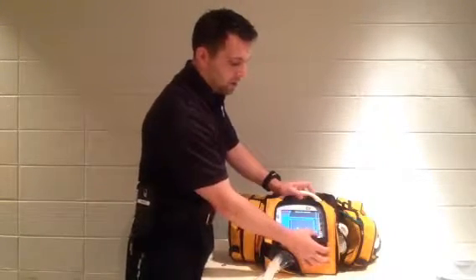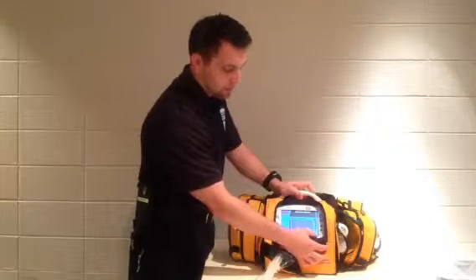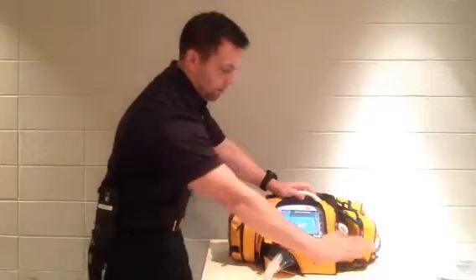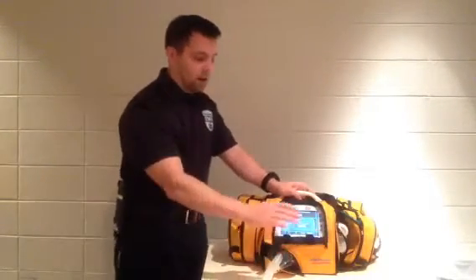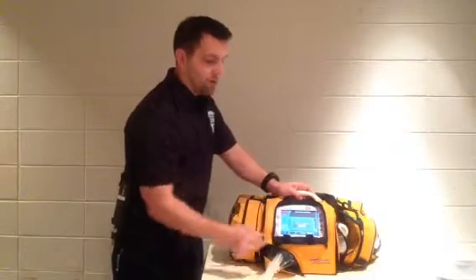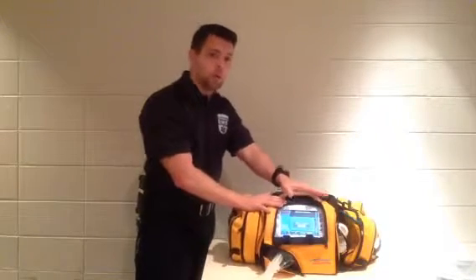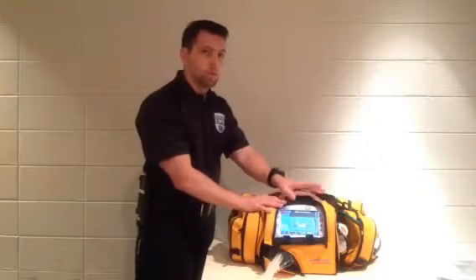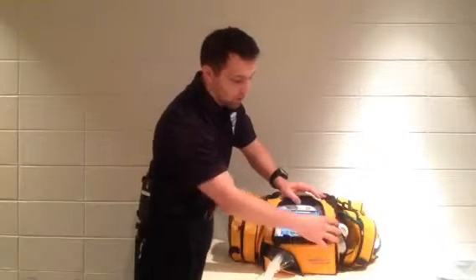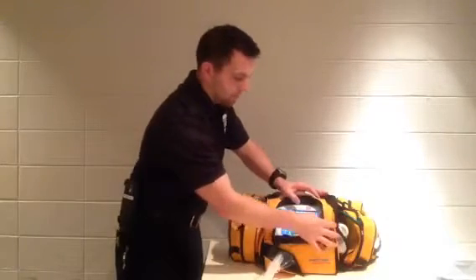The last one over here, it says transport. If I hit that, it goes to basic. Hit accept. Basic simply wipes out all the settings. Everything still ventilates the same, but it wipes out all the configurations here, and it just shows a basic clock. That's because this ventilator can be used as a patient's home personal ventilator, so it's set up that way. Another option is going to hospital version, and then finally back to transport.